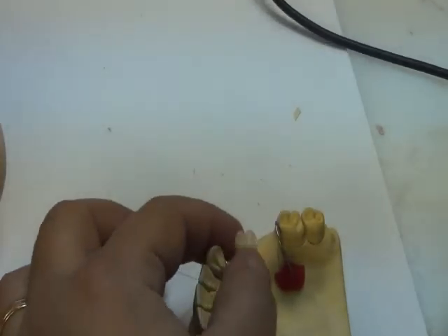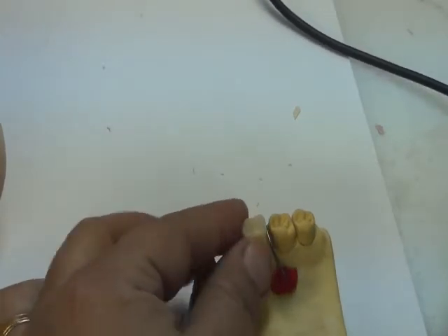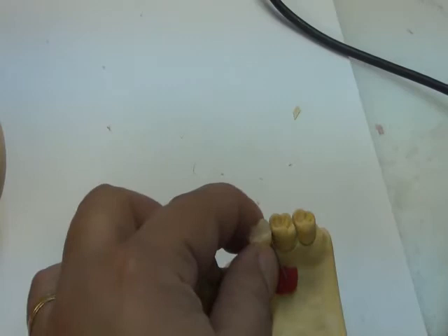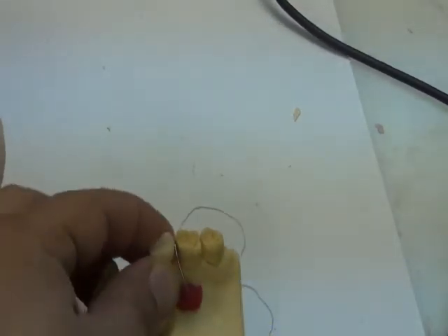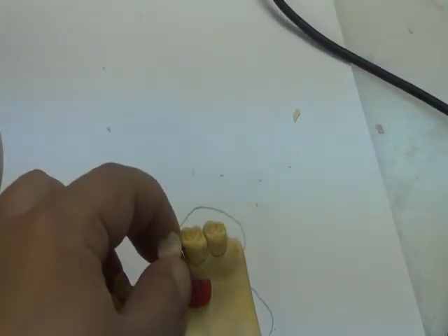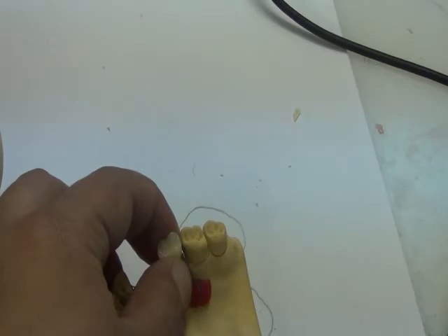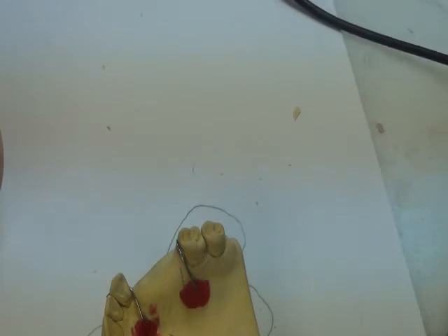So I went back to my wire, and I rebend it in a way that I should now have no interference with the contact between the artificial and the natural tooth. Okay? So I adjust my wire bending. Suppose that my wires are okay. I checked that all wires are not interfering, and now I need to begin the steps of adding wax.